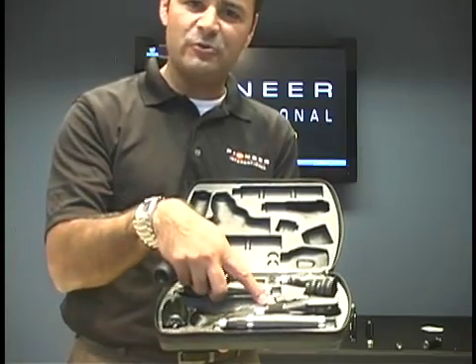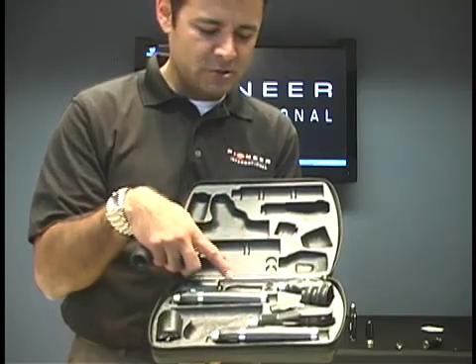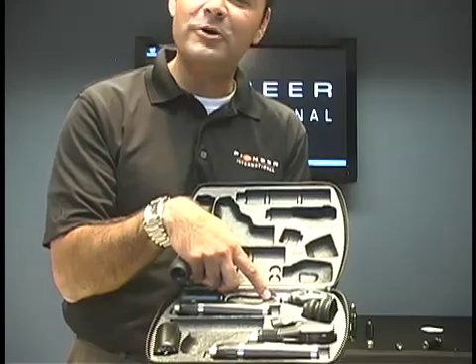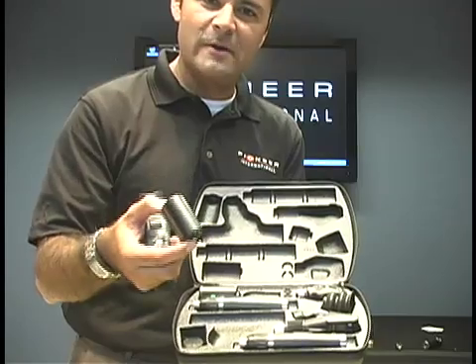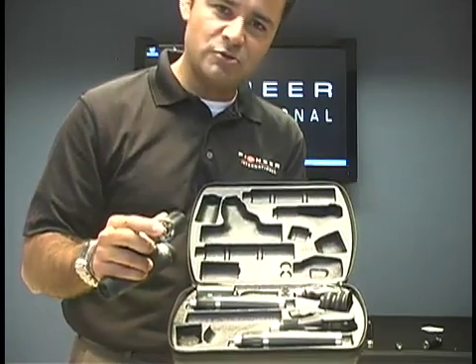Notice inside, we've got a space for the retinoscope, we've got a transilluminator, we've got our ophthalmoscopes. This section is for putting lamps in — make sure you put them in upside down. The other thing is we've got our AC adapter. When you're in lab and you run out of battery, now you can charge while you're using your other handle.